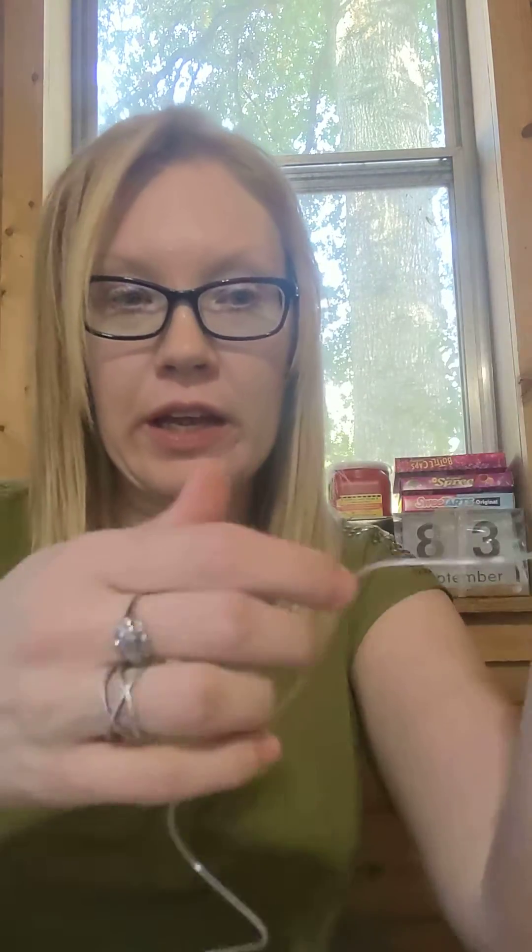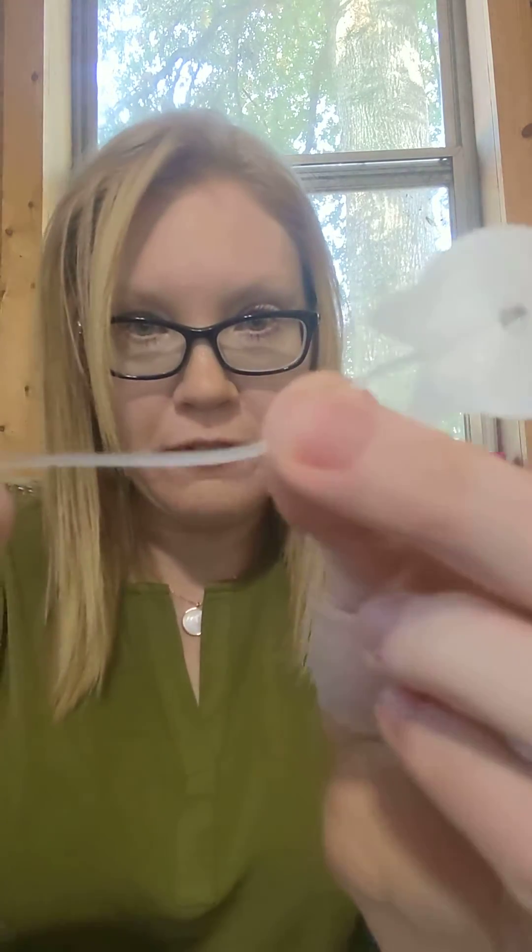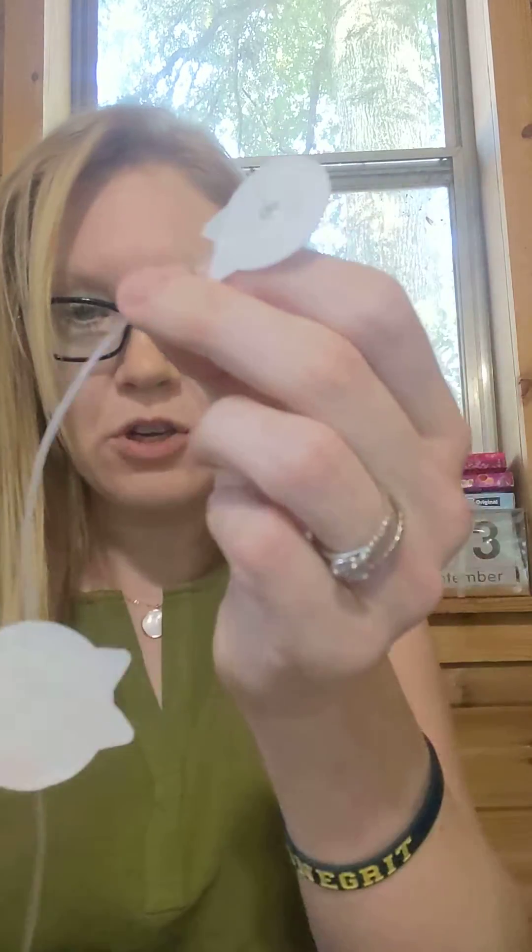Now, I do not see any air bubbles in this tubing at all — but actually, I'm wrong. There is a little bit of an air bubble right here at the end; you can't really see that. But yeah, I see a tiny bit of air here. So this is perfect — I'm gonna show an example of how I would get that air out.